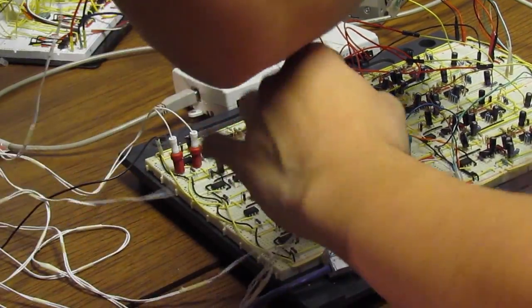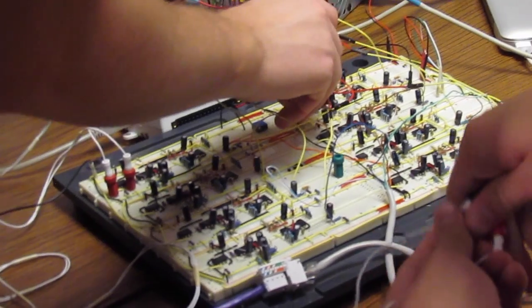For instance, we want to make sure we can provide enough force so when the user is gripping a coke bottle, they can actually lift it up without it slipping out of the hand.